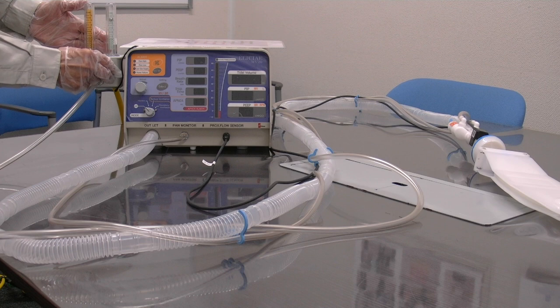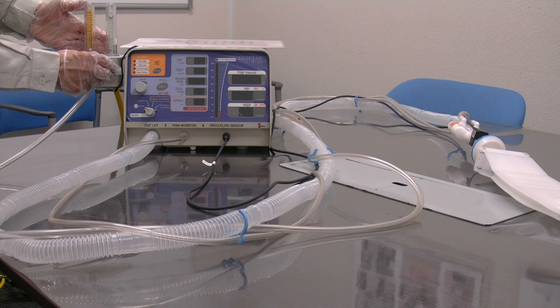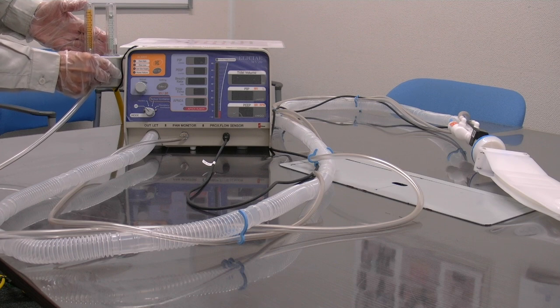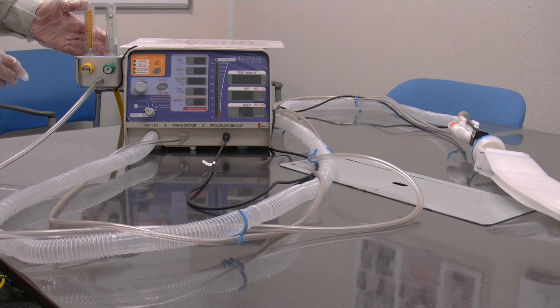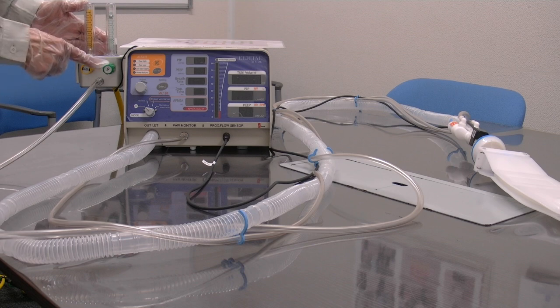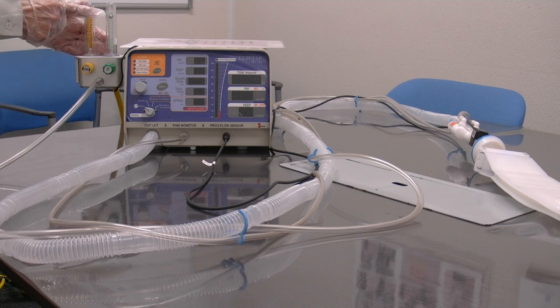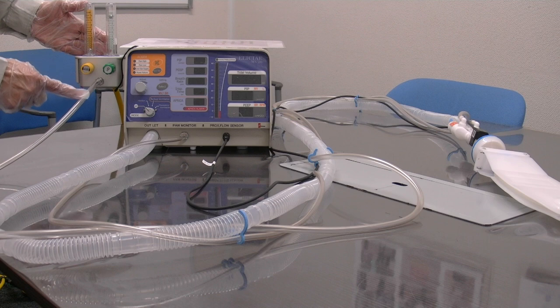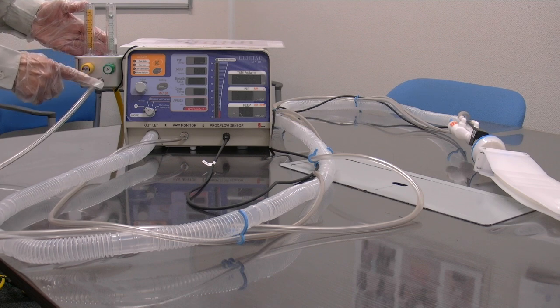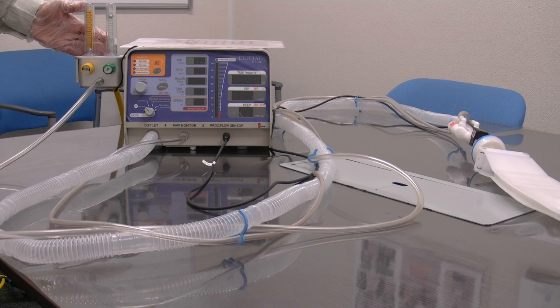We recommend a flow of 15 litres per minute as the basic standard. If you open the O2 valve to 15 litres per minute, then the air valve can be closed. This will give an FiO2 of close to 100%.